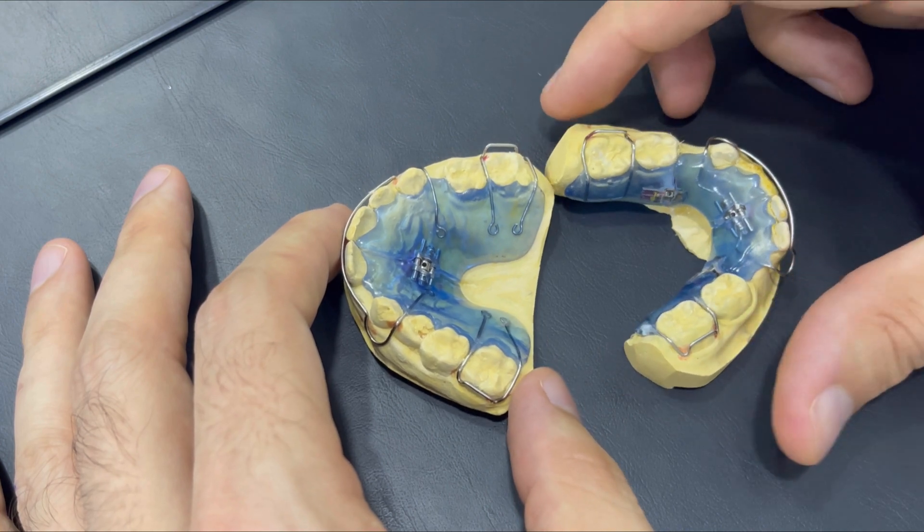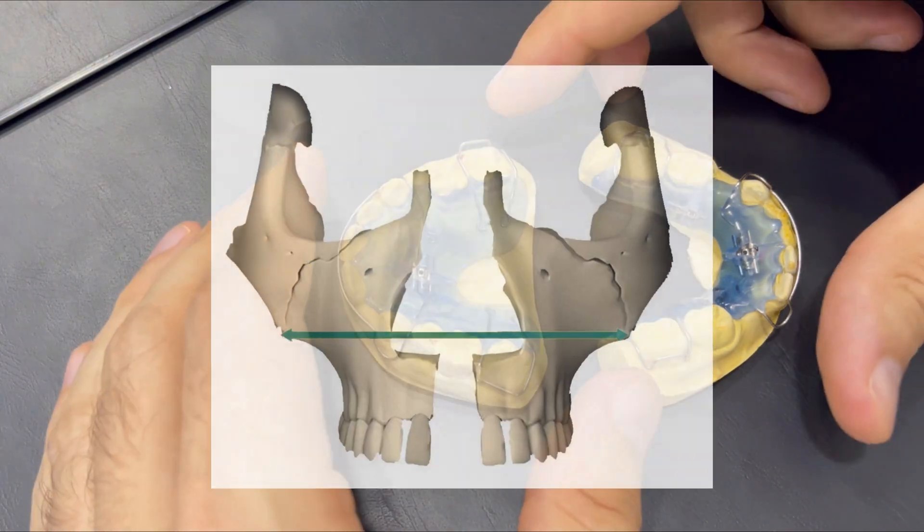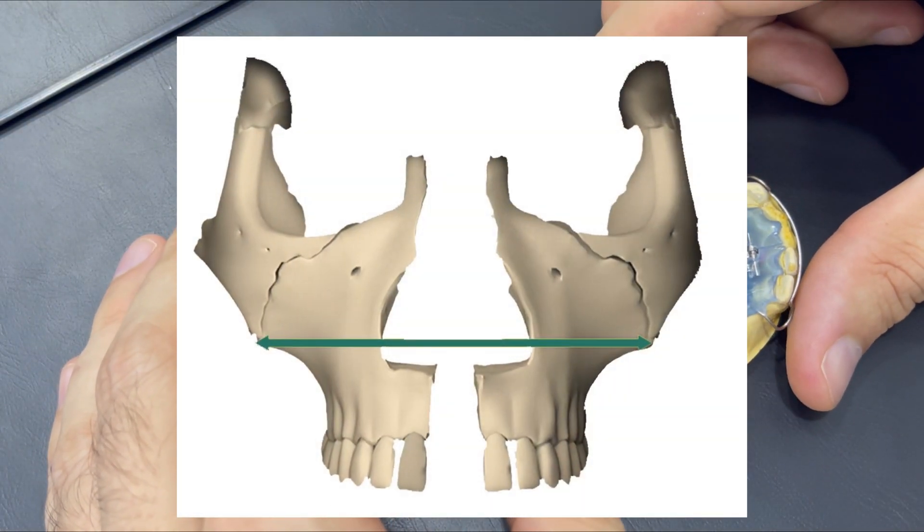One important reason to do the expansion, especially the fixed one, is expanding the nasal airways, which we'll talk about later.